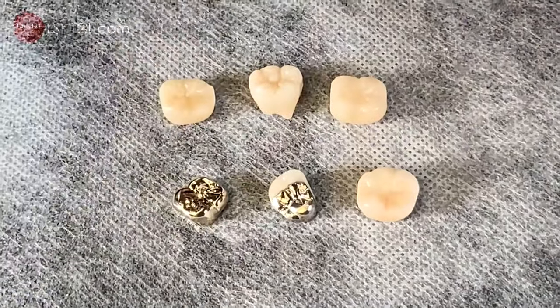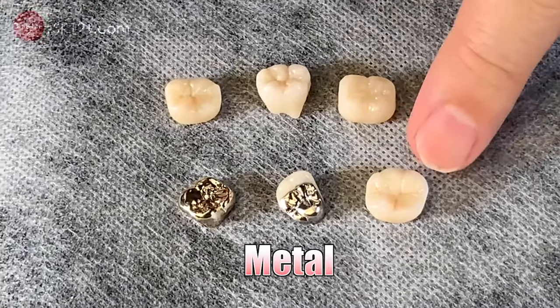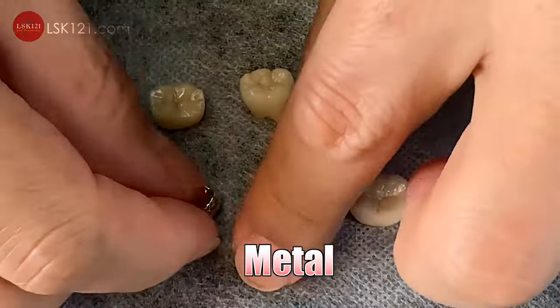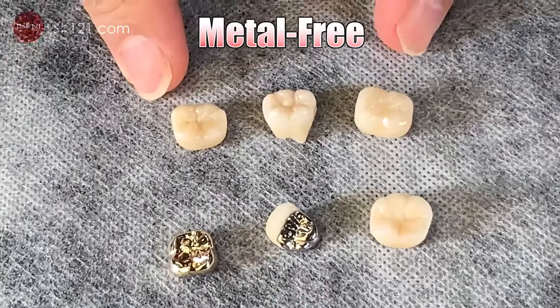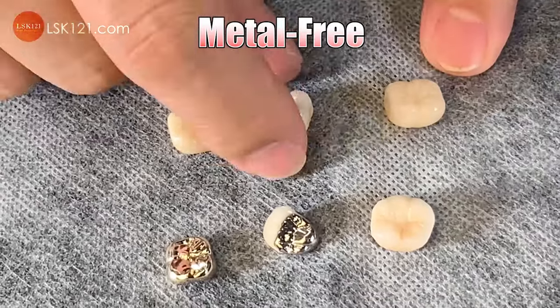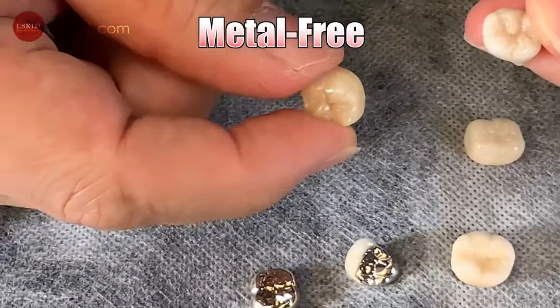You do have two options. The metal options: one is porcelain-fused metal, one is metal occlusion — facial we add porcelain — and then full gold restoration. The other one is metal-free. One is lithium disilicate and the other one is zirconia, layered. And here is mono.